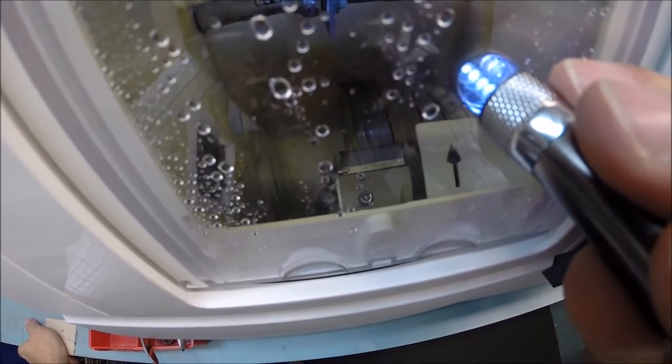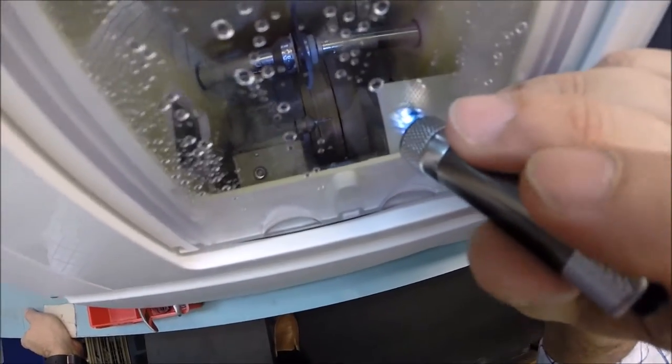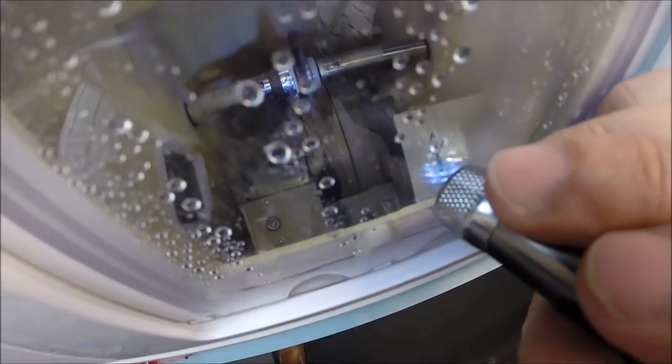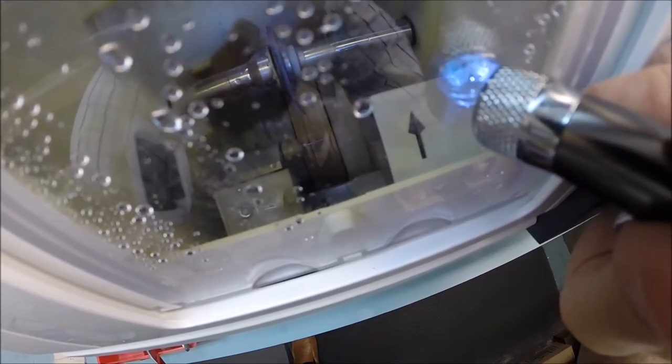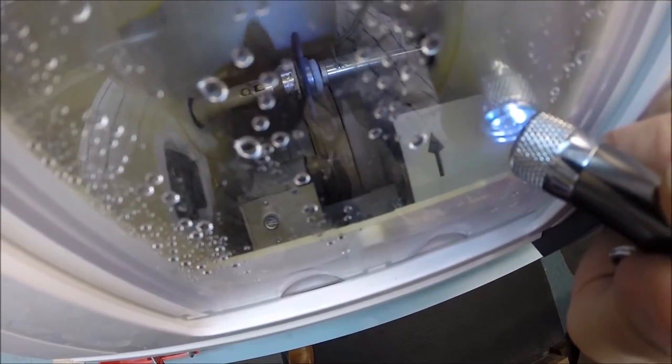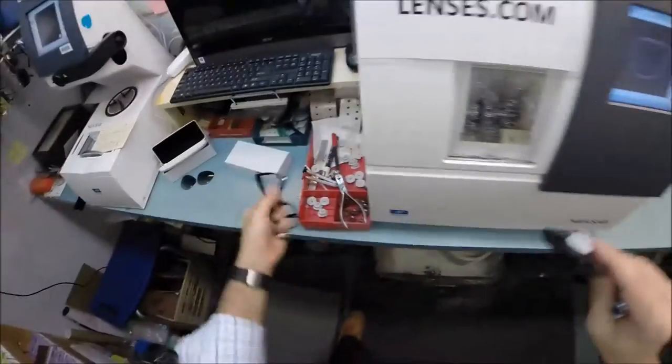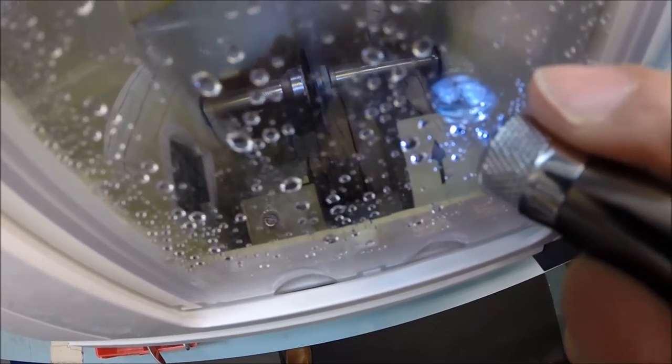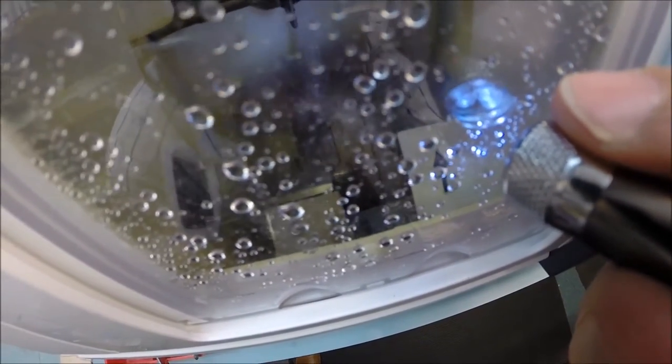Your lens is completely flat at the edges like a nickel. It's being placed down onto the bevel wheel so you get a knife-like bevel so it will fit inside the frame and stay inside. Not only are your lenses thinner, lighter, unbreakable, bulletproof to 22 caliber with UVA UVB protection and scratch coating, but it's also an aspheric lens. I've flattened the front curvature so it fits with the curvature of the frame. A spherical lens is completely round and gives you an ugly cosmetic fishbowl appearance.